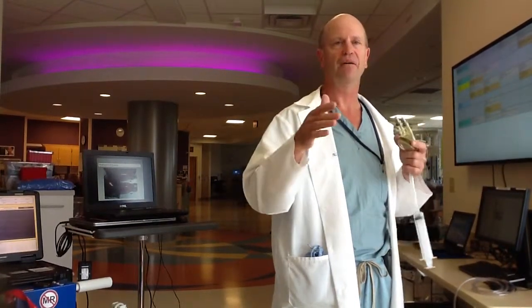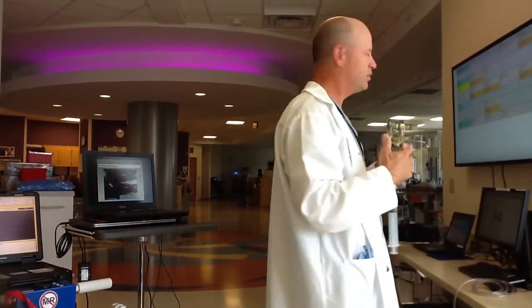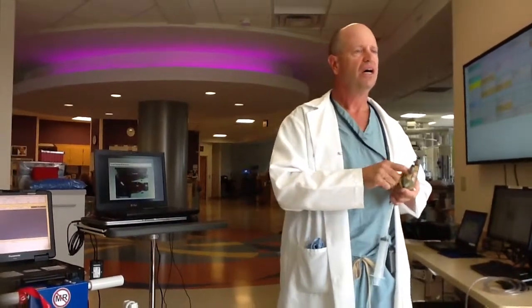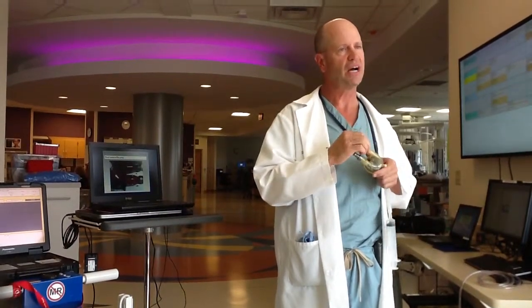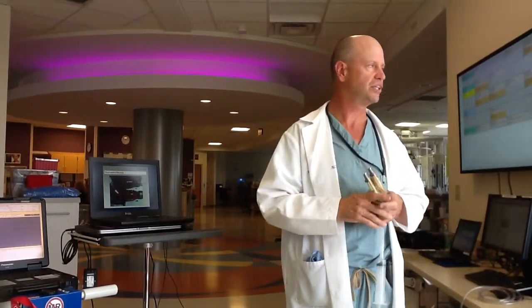I don't get paid enough to make those decisions — the guys in the white coats will make them. Don't get too upset when we start to see things growing in there and they won't change it out, because it's no small feat to get that thing changed.